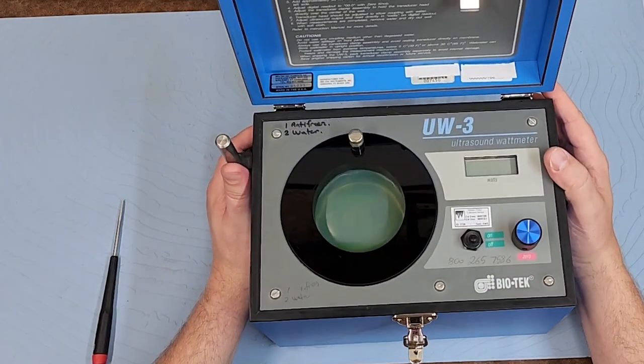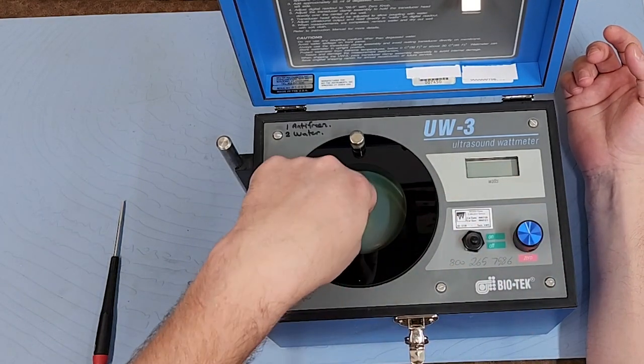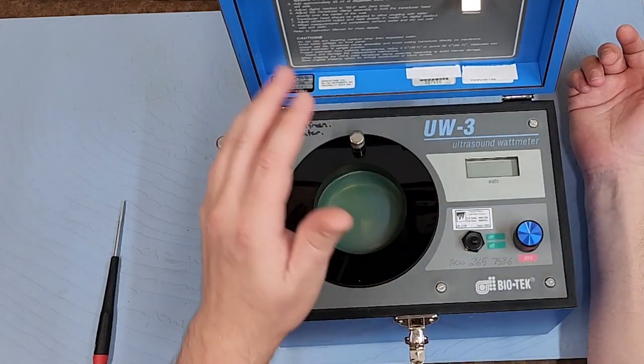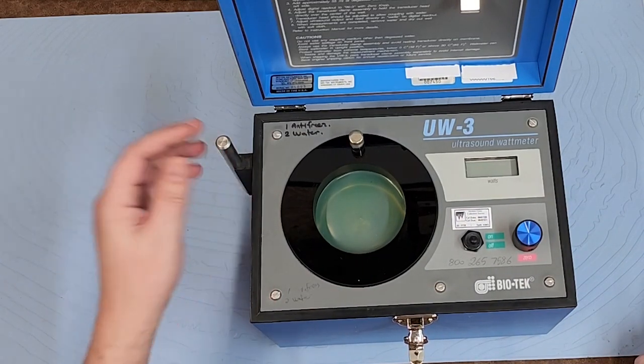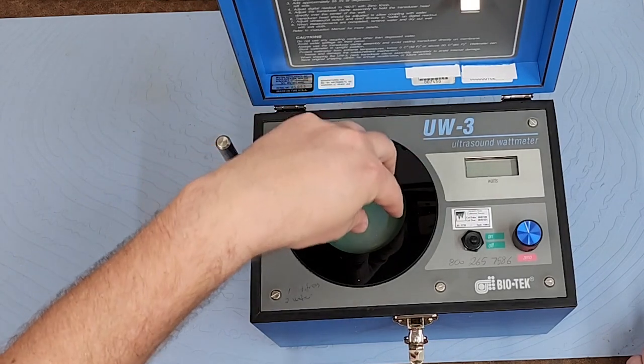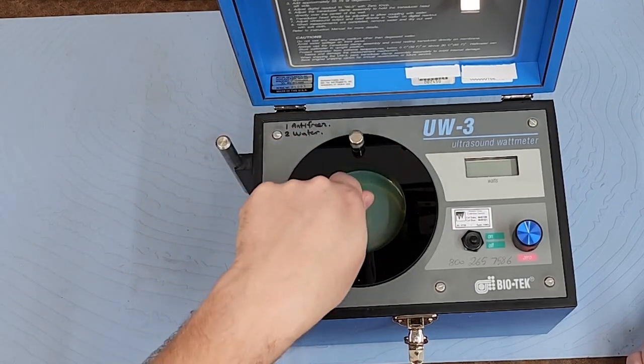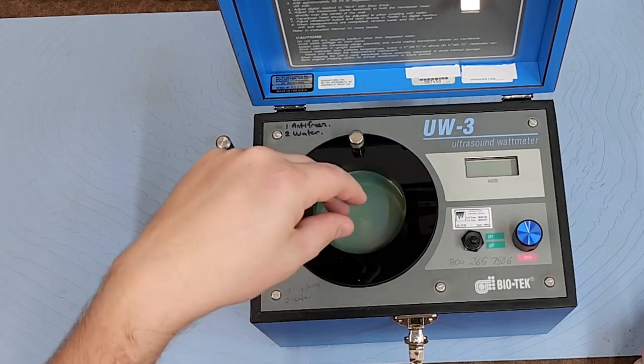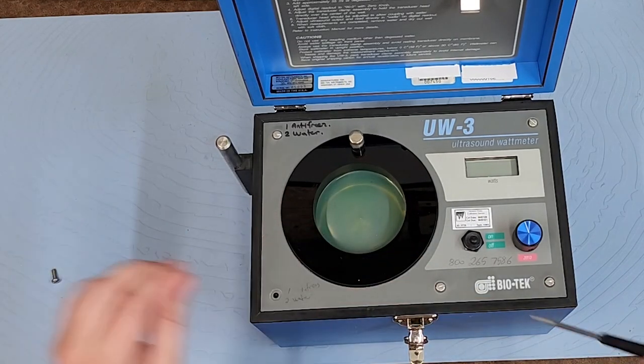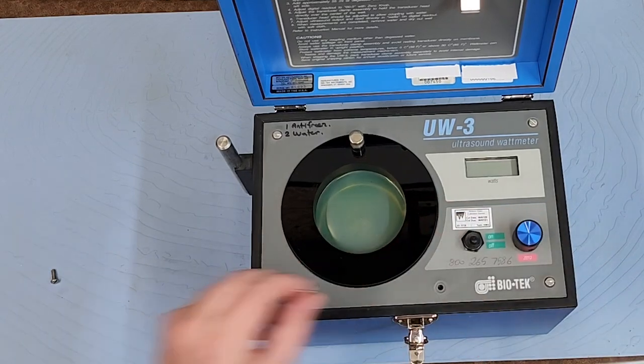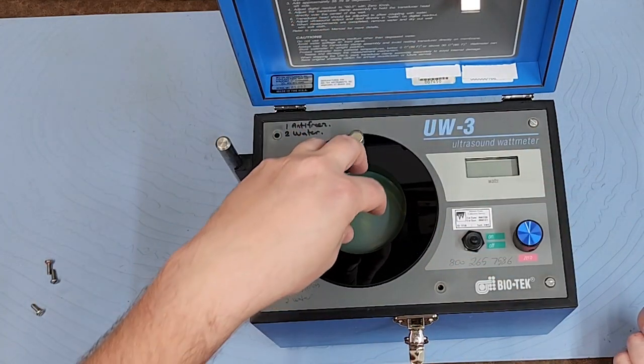Very cool, I love it. I have a zero knob right here, so that adjusts the gain on the scale. It's technically a scale. So guys, we're going to go ahead and take it apart. I don't see the arm here that holds the ultrasonic therapy probe - there should be like three fingers or so that mount on this guy. I don't see it here, so that means it's just a component that's missing. I could make another one, doesn't really matter. All you have to do is make sure that you hold the ultrasound probe nice and stable.